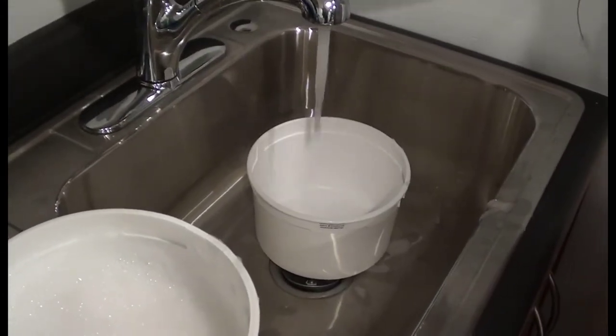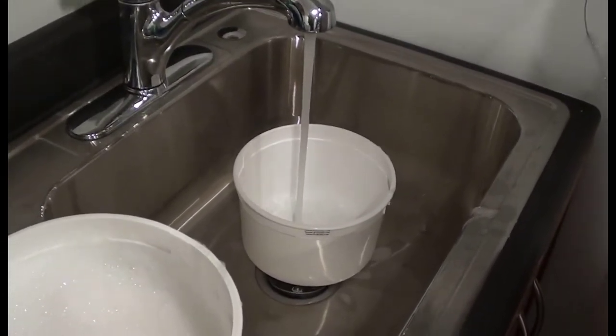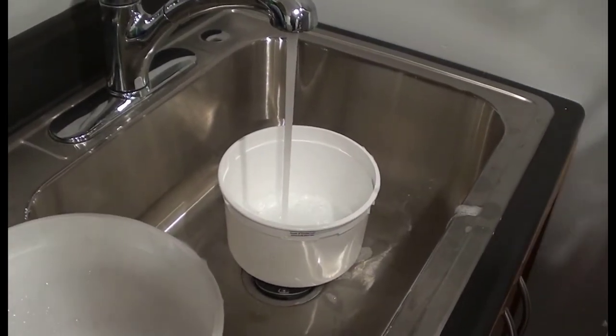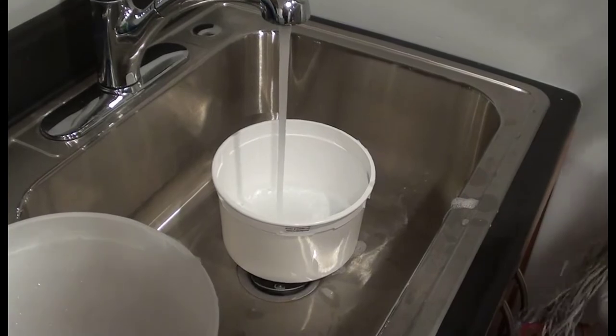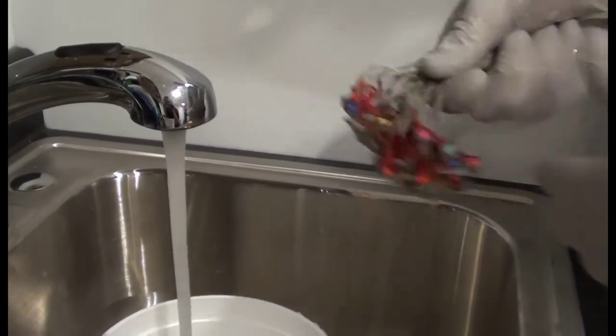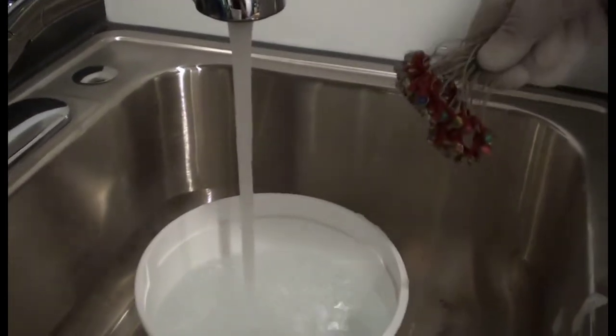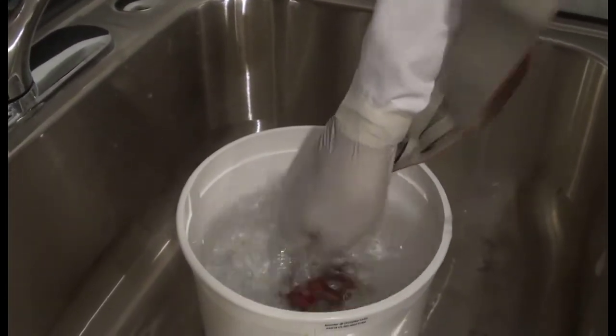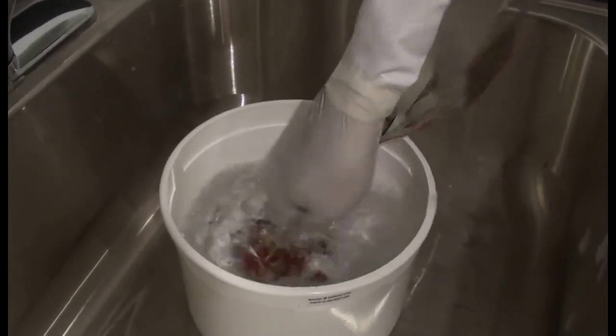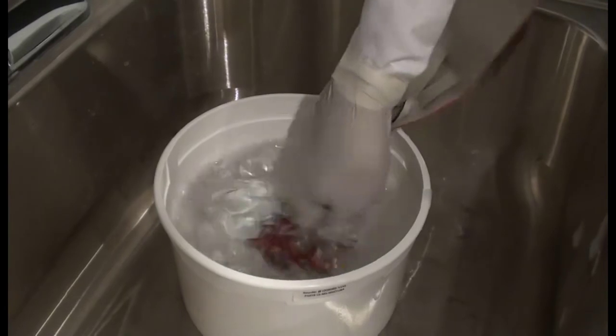Run another bucket of warm water, but this time without any soap. This is for washing the electrodes. The warmer the water, the better, but remember that the water should be tolerable to the hand and not scalding hot. Take one set of 32 pen-type electrodes at a time and grasp the cable a couple of inches from the electrode heads. Swish the electrode heads in the warm water for about 30 seconds to a minute. That should be enough to remove any gel and hair from the electrodes.